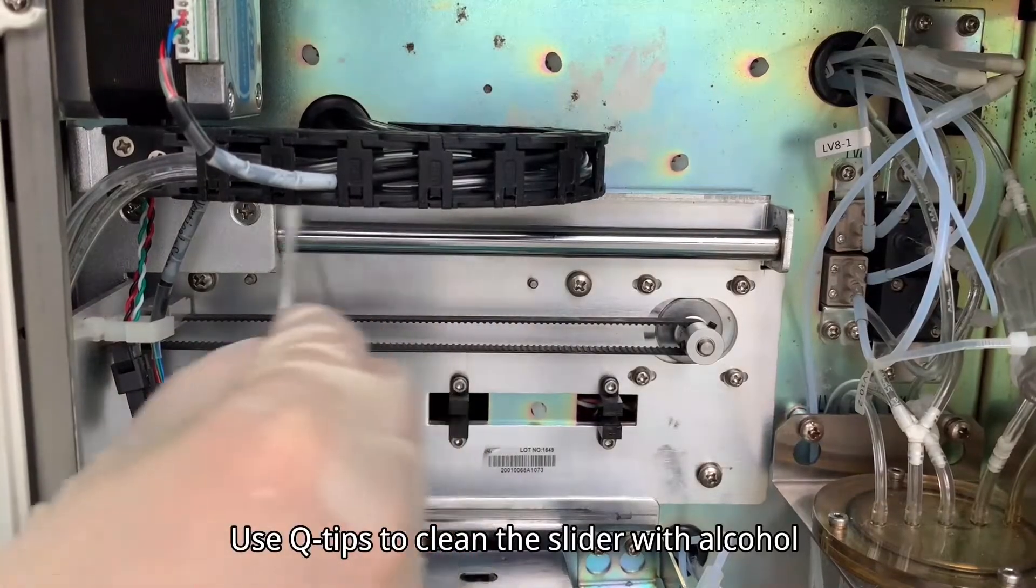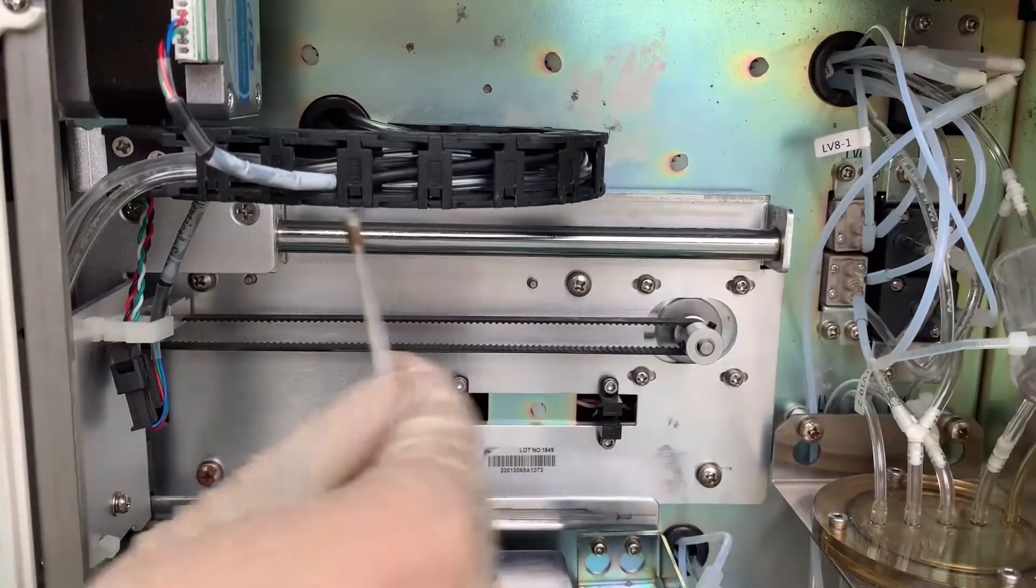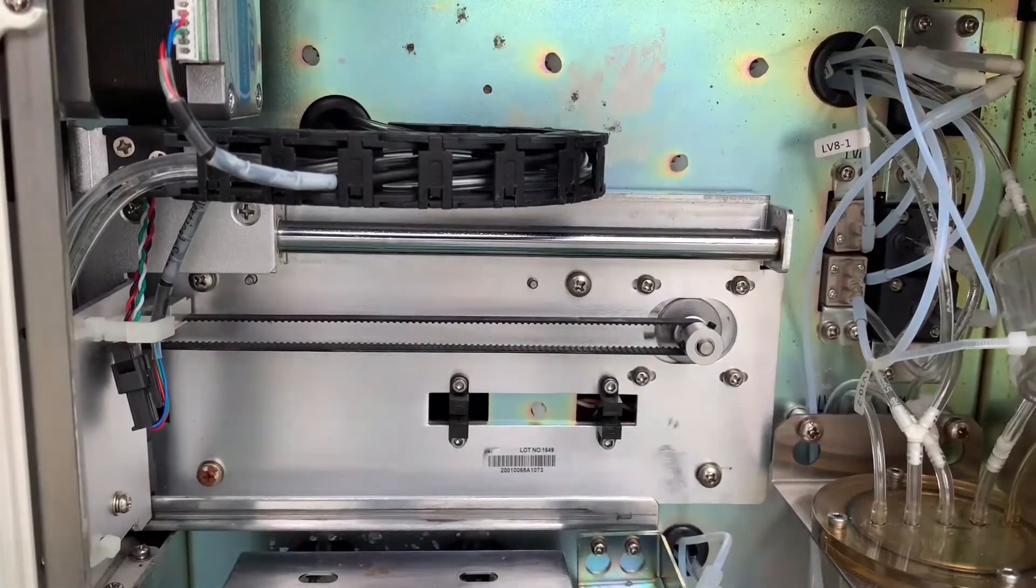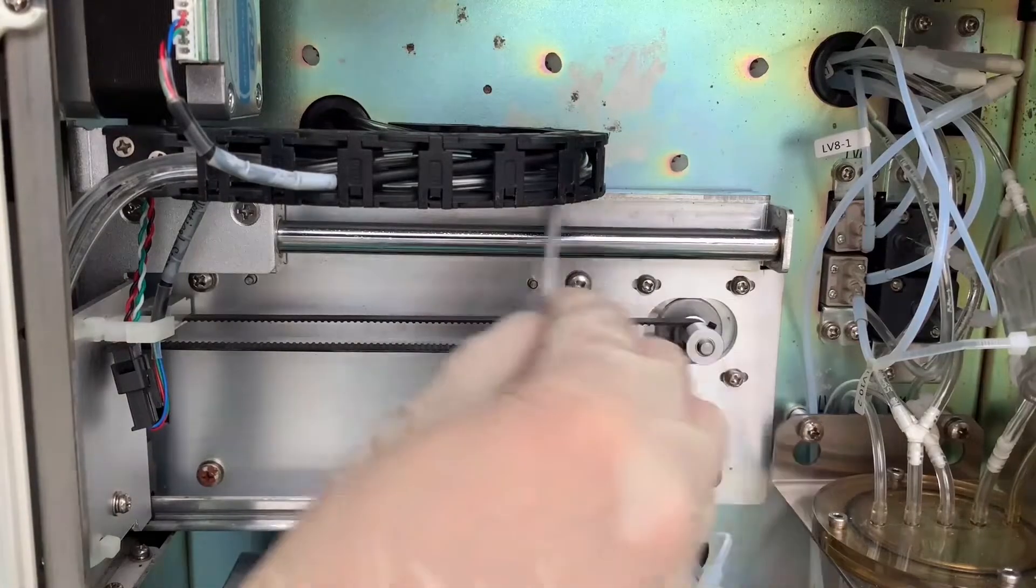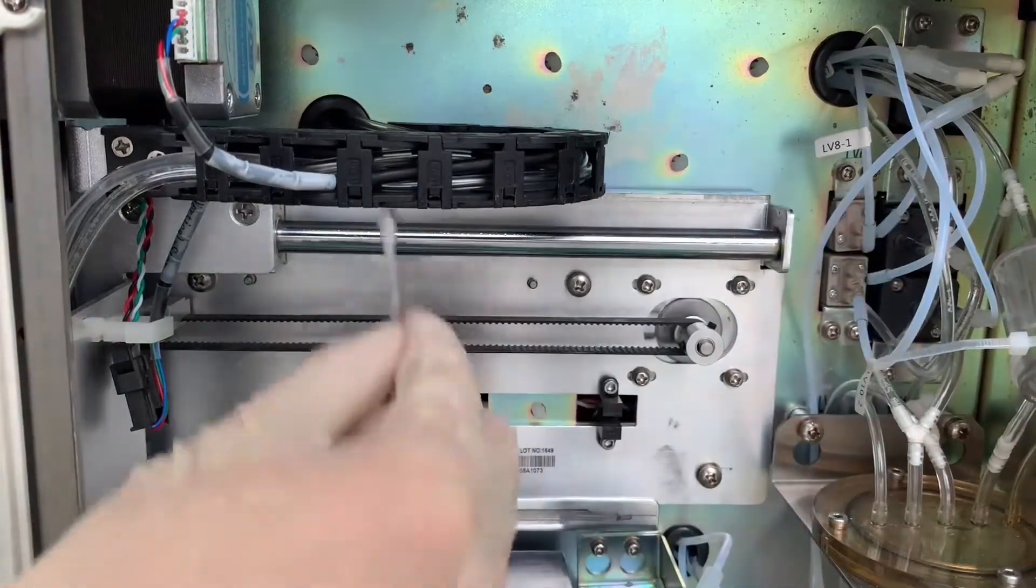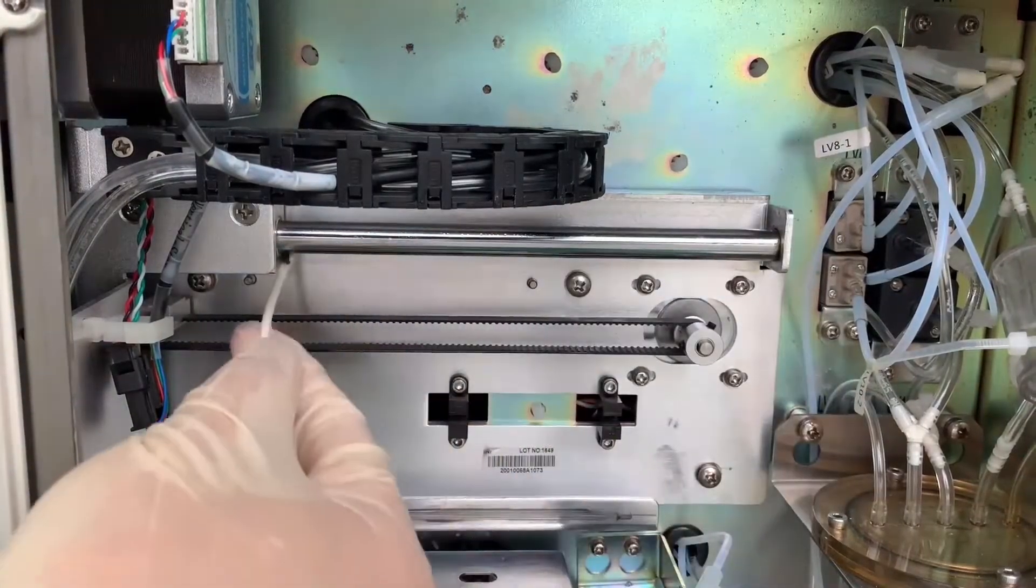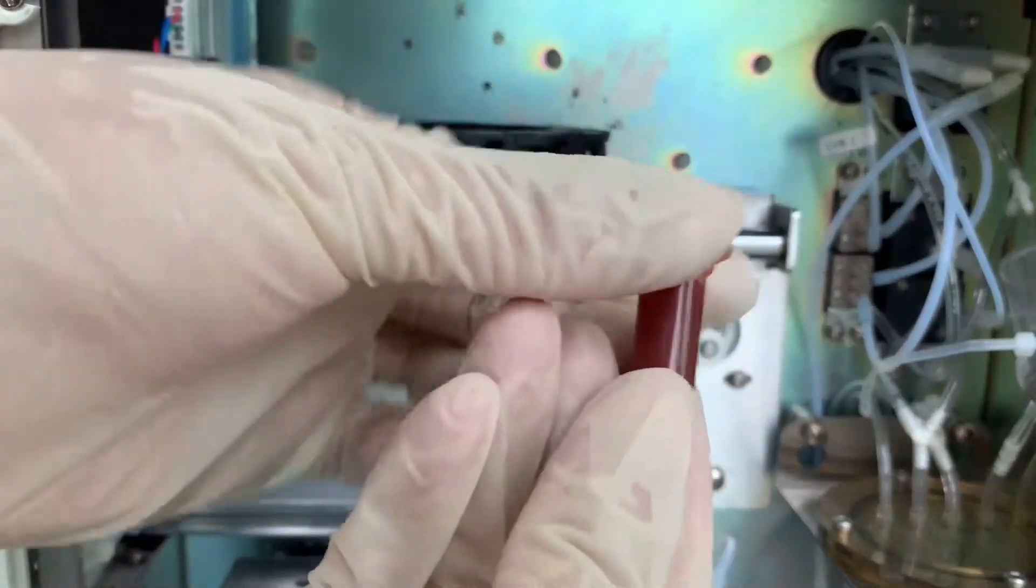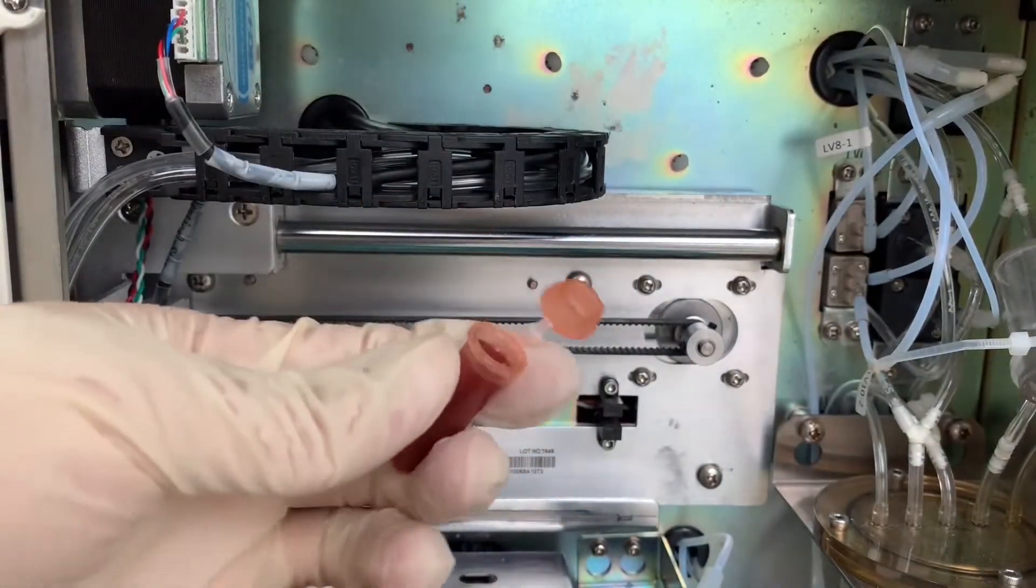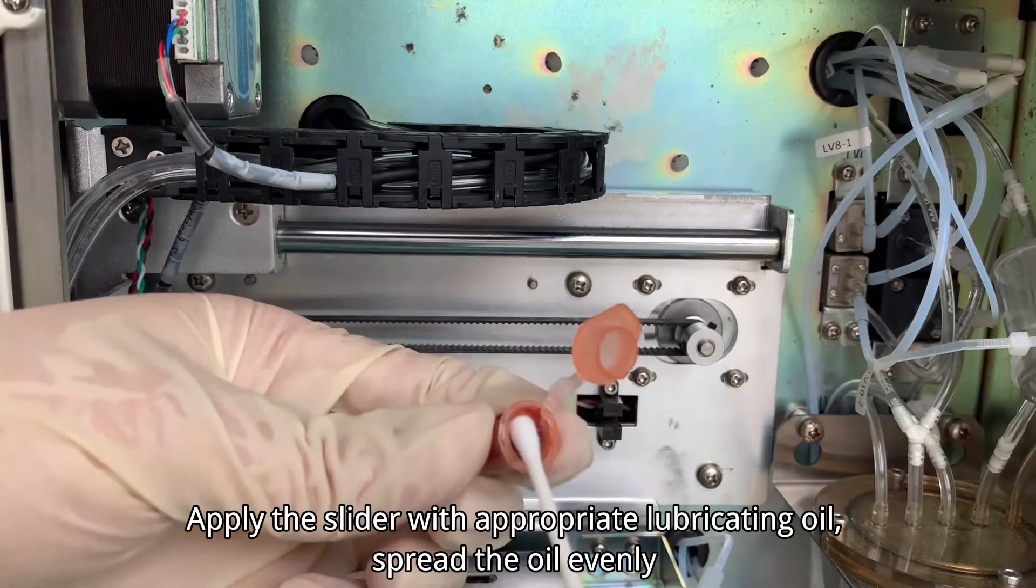Use q-tips to clean the slider with alcohol. Apply the slider with appropriate lubricating oil. Spread the oil evenly.